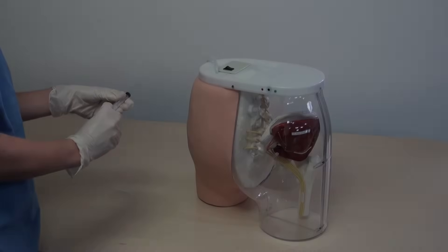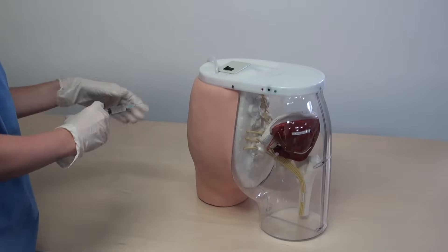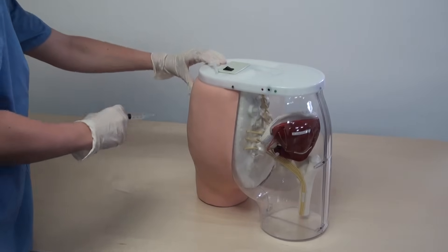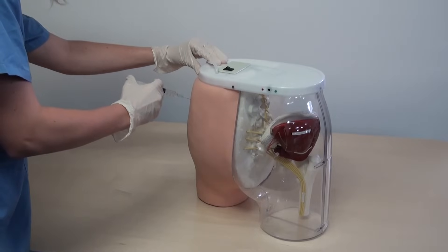Provide your students with opportunities for individual or group practice administering intramuscular injections with RealityWorks Buttocks Intramuscular Injection Simulator.